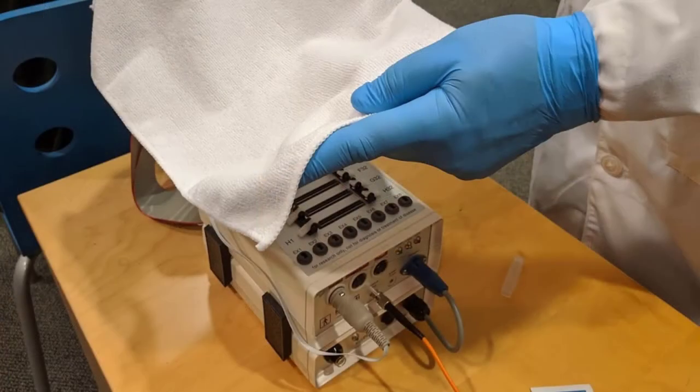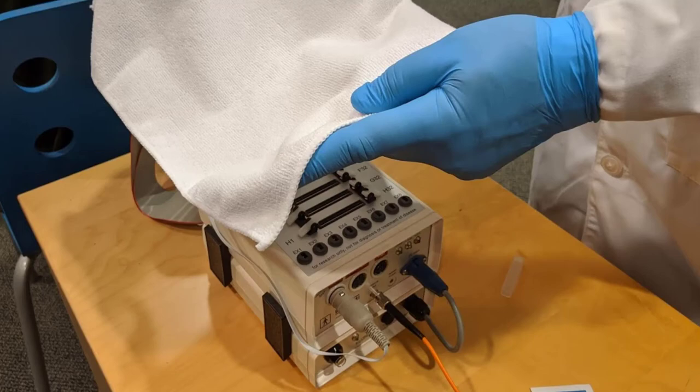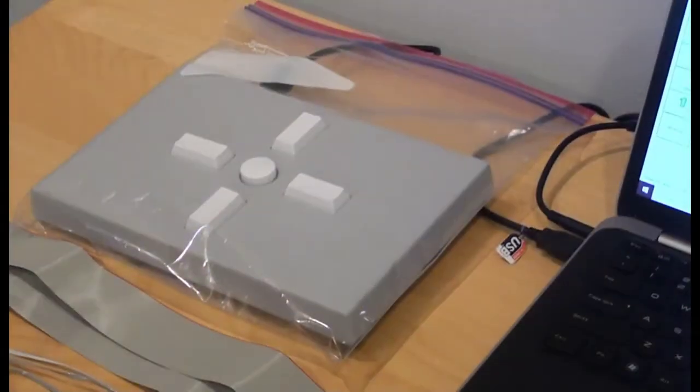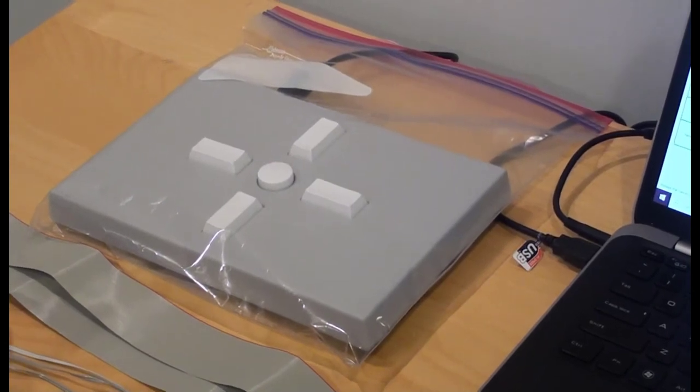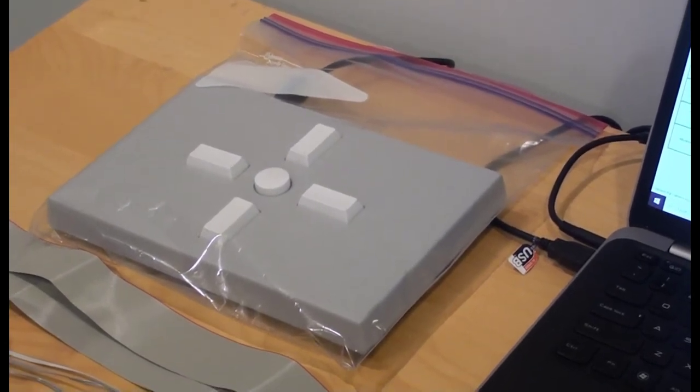You might consider covering the AD box with a cloth to minimize the chance of gel or other sources of moisture from getting into the connectors. Any items like response boxes that the participant will touch should either be covered so they can be kept clean or they should be disinfected thoroughly after the procedure.